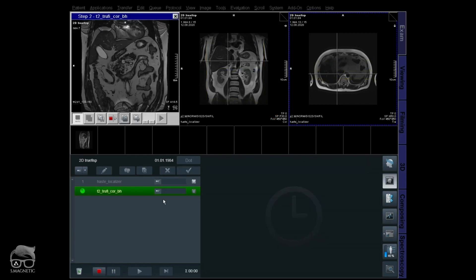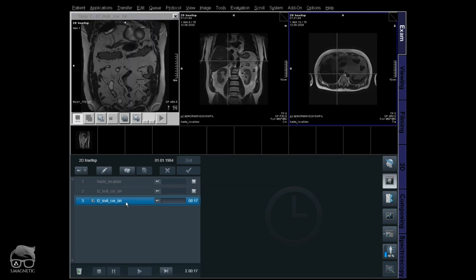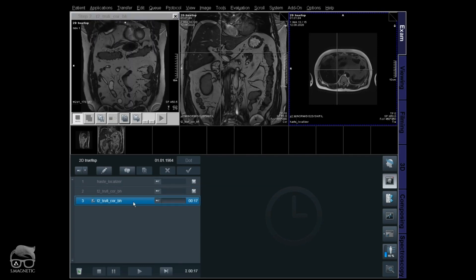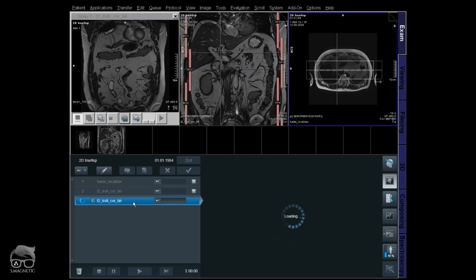Okay, so you have the images right there. Let's just check that one — you can see at the top here there's a banding artifact, and in the corner as well. This one is really bothering me, so let's try to modify the sequence.